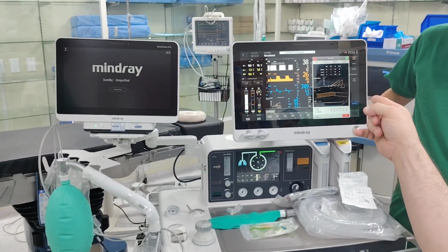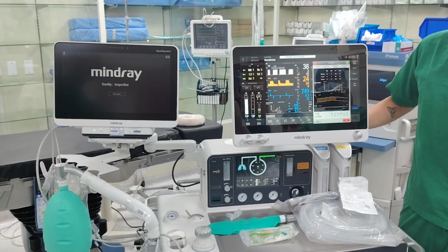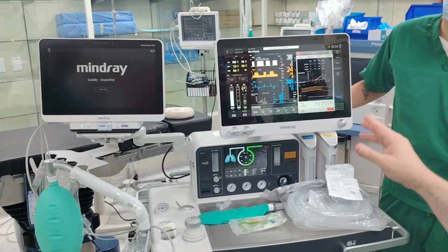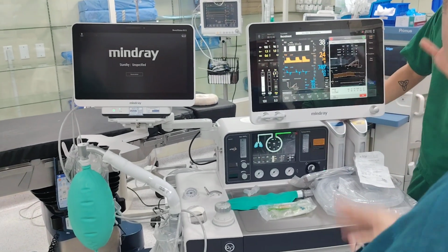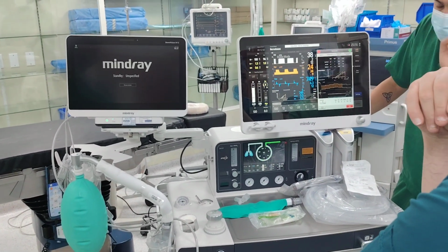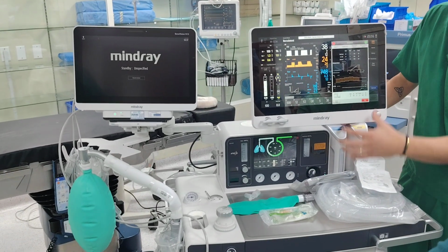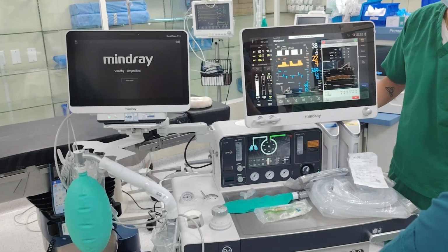Shall I make the PEEP 0 or not do it? I would recommend you always put 5, Sarahatan. PEEP 0, unless, yeah. I mean, during this procedure, no, you don't need to. Because there are 2 things I want to tell you. Once this recruitment is done, whether multi-step or single step, it will go back to its previous settings.